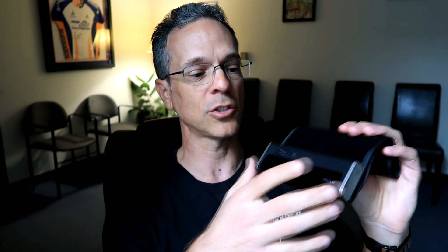Let me show you how this works. We've had a very stressful day dealing with Blue Shield — these people do not know what they're doing. This is a great little machine and it's so easy. It has instructions on the back, no latex, and it tells you to go about two centimeters away from your elbow. This part here goes on the inside of your arm.